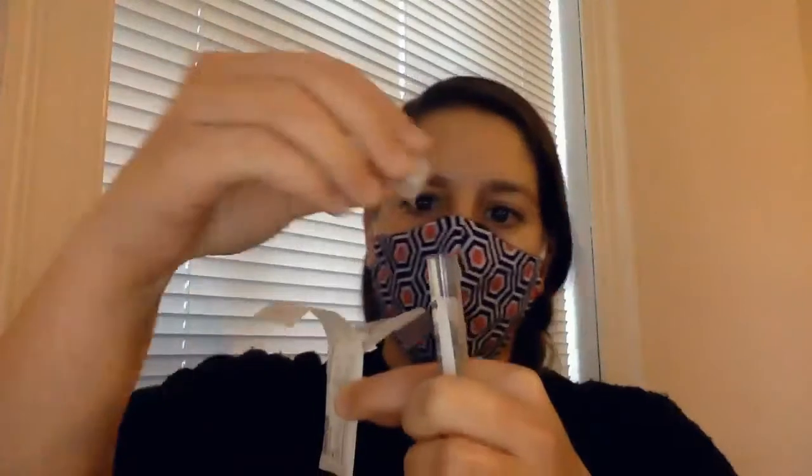What I'm going to do is pull my mask down just long enough to swab — one, two, three, four, five rotations in the first nostril — and then the other nostril, avoiding my nose ring — one, two, three, four, five. And I'm just going to drop that down into the tube, put my mask back up without touching my face, and go ahead and cap it.